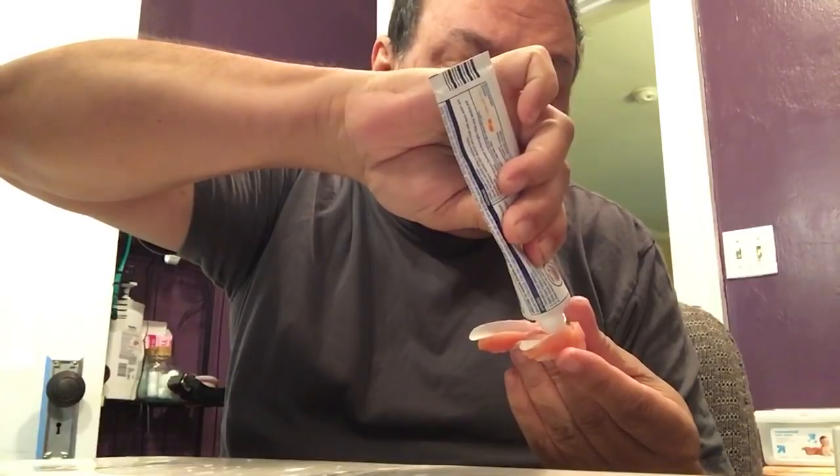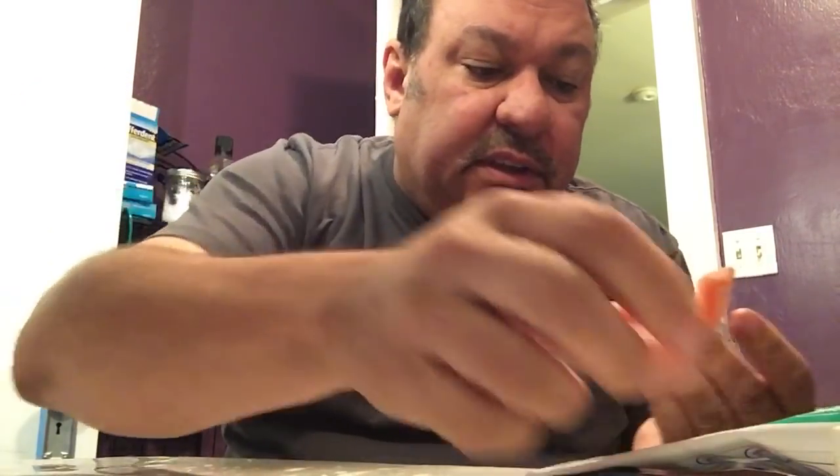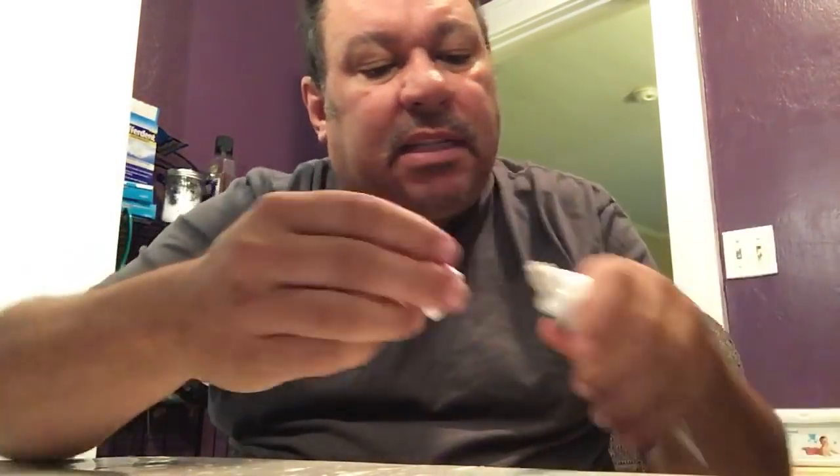I add a little more adhesive — I find that this gives me some cushioning, a little extra clearance, maybe a better fit. There's my bottom, and there are my choppers. I usually let it sit for a while — you can feel when they get hard, about 15 minutes or so. And that's it.